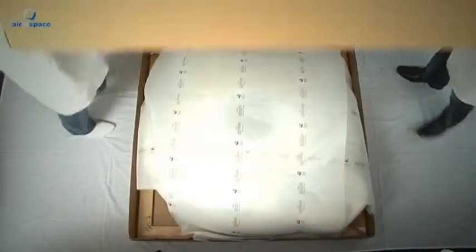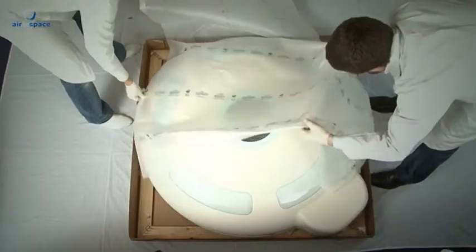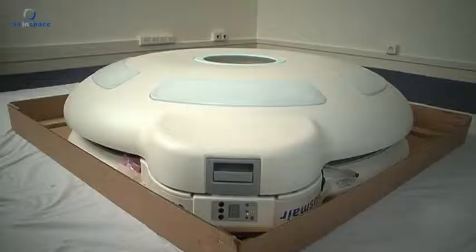The C2010 unit is delivered fully assembled. To install it, you'll need a 13mm flat spanner and a 6mm hexagonal allen key.